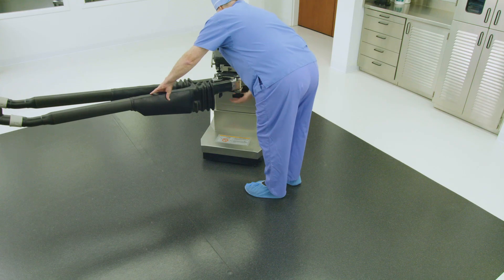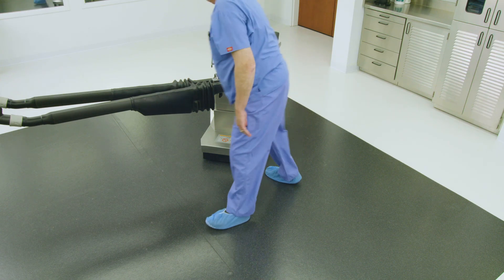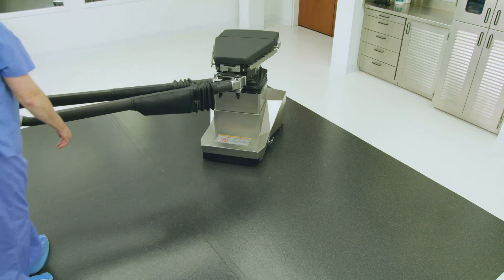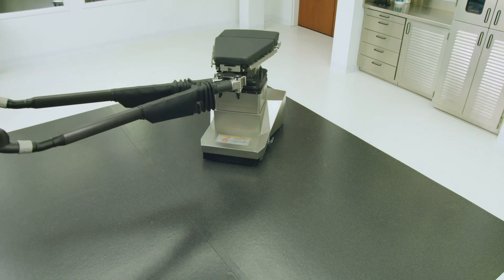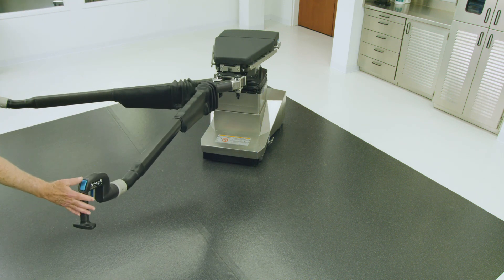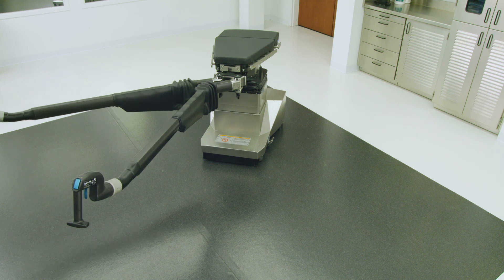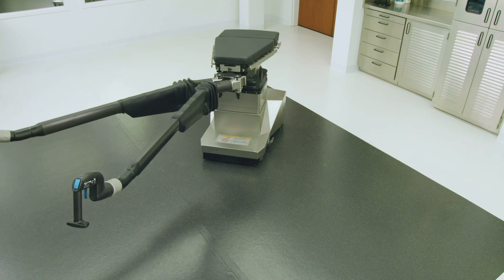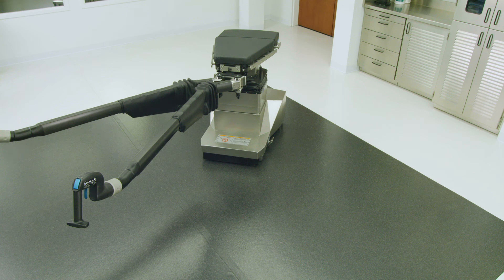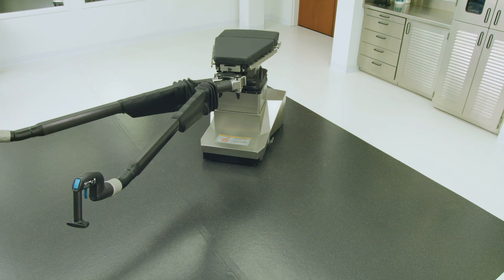Adjust the patient's left and right leg abductor spars using the control handles as shown. Refer to the illustrations on page 18 of the OT Table Setup Guide or position spars as clinically required. Reverse these settings for an operative right leg procedure.